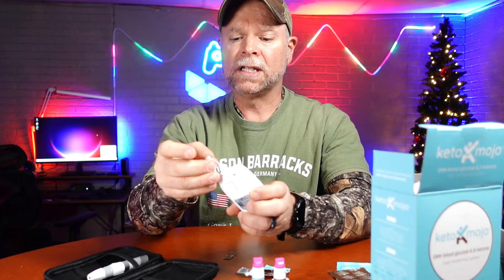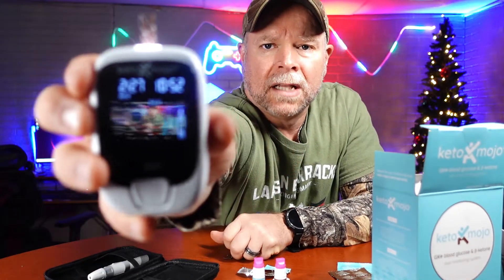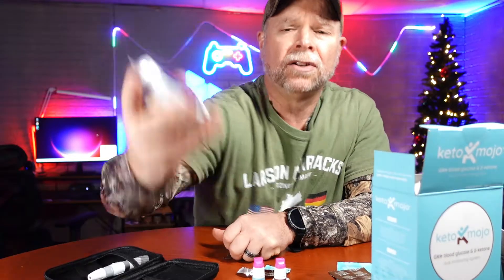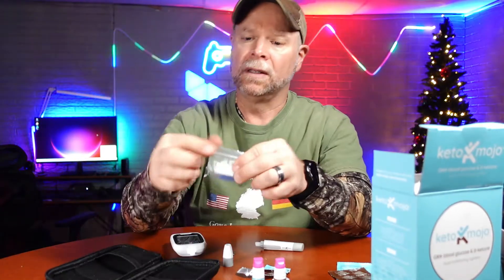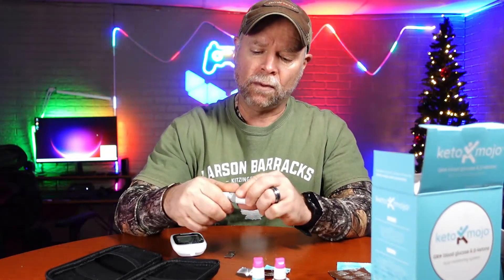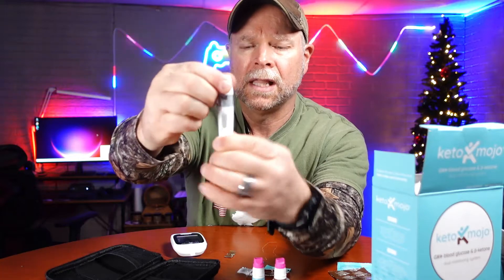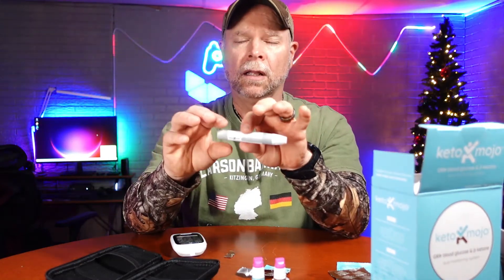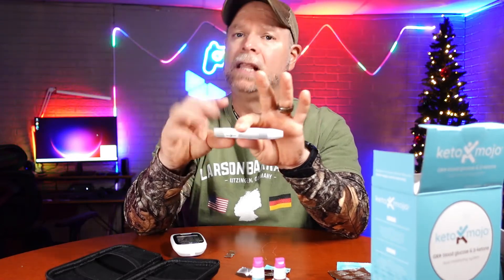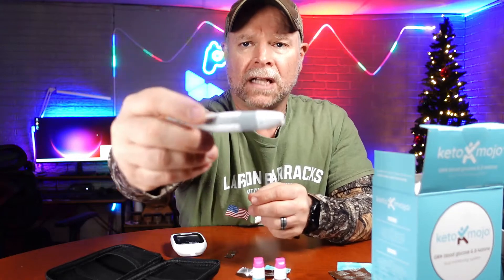You're just going to stick the strip in, and when you do it's going to read what type of test strip it is. You can see it says GLU, so it's reading it as a glucose monitor strip. Then pull out your little pin pricker and add one of the fine needles. I put it on a four because I want to make sure I'm getting a good prick and a good blood sample. You can change the dial on the top — it goes one to five. If you do need to reload, just pull the back until it clicks and you're ready to go. There's a push button to eject the needle into your finger, and a slider to eject the entire needle out so you can dispose of it appropriately.